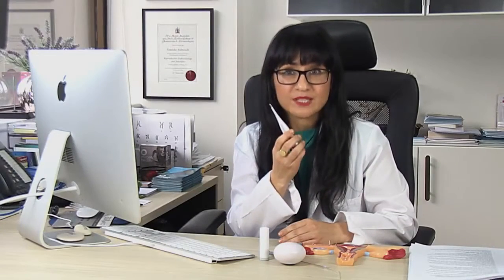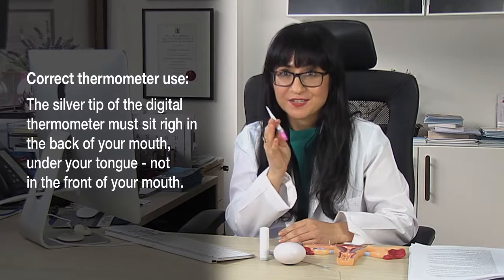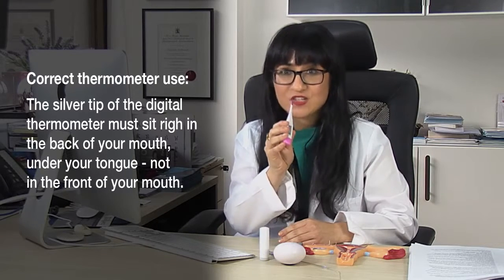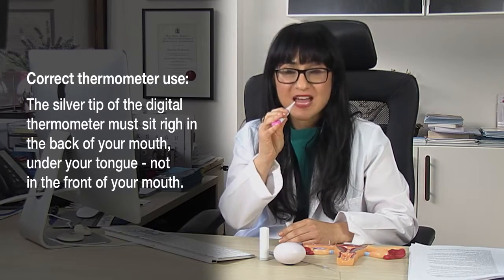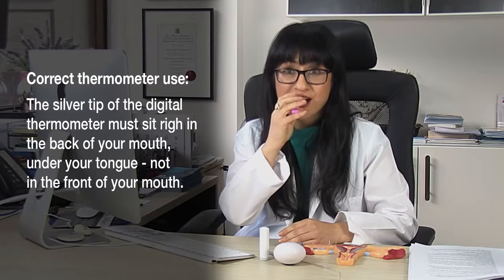It's really important you know how to use this properly. Forgive me if you can't understand what I'm saying because I'm going to put this in my mouth to demonstrate — but it's not doing this. That doesn't work. It needs to go deep into the mouth, in between the bottom of the mouth and the tongue, and it needs to stay there until you get a recording.